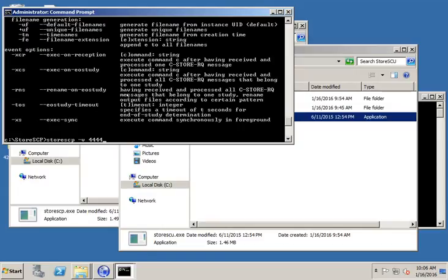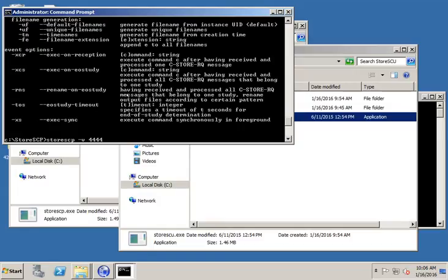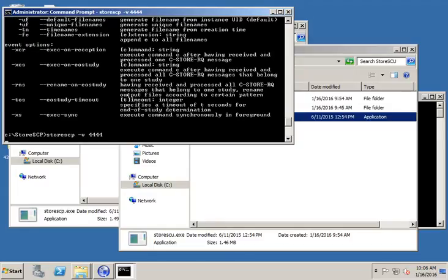However, in some cases when I'm troubleshooting, I'll turn off a PACS system so it's not listening on a port, and I will use its port and see if it can receive DICOM files. And of course, it'll store the DICOM files, so if you need to import those into the PACS later on, you certainly could so you don't lose the files. So we're going to go ahead and run that. So now we're listening on port 4444 for DICOM with storeSCP.